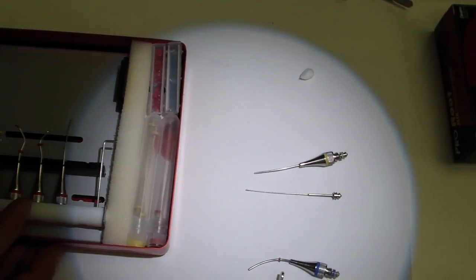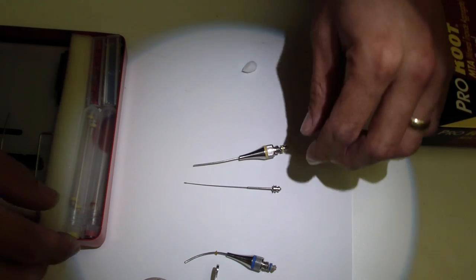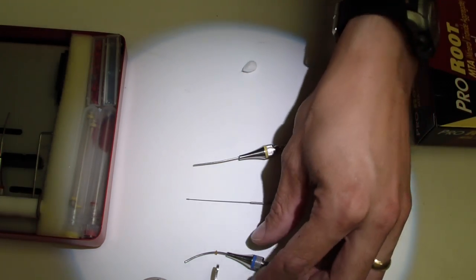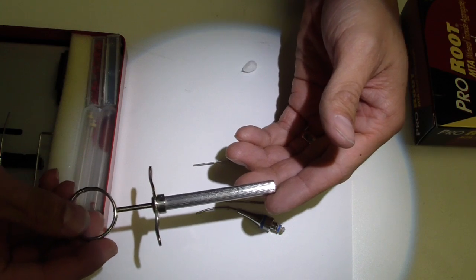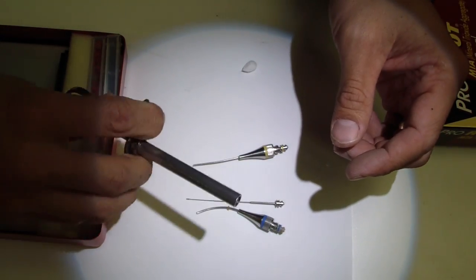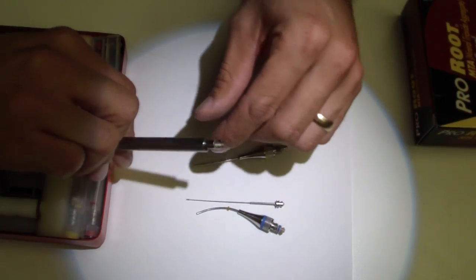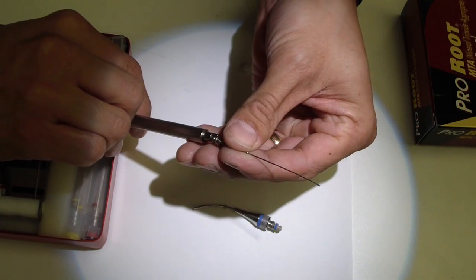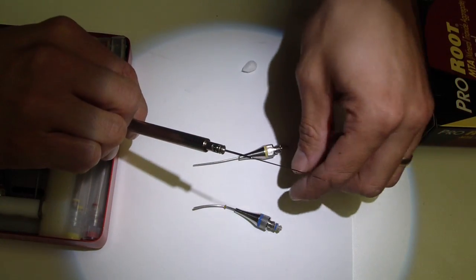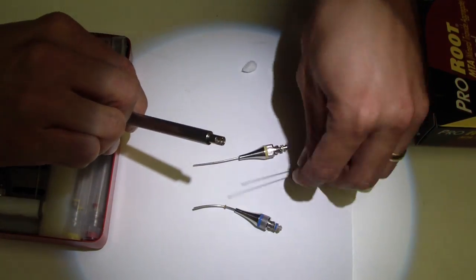The way it works is you've got your piston and then you've got the carrier. This is the syringe that's spring-loaded. You can see there's a groove there. We take the piston to the size that you're using and place it in here. Let's go with the blue.